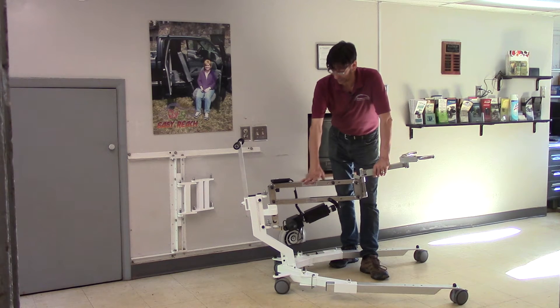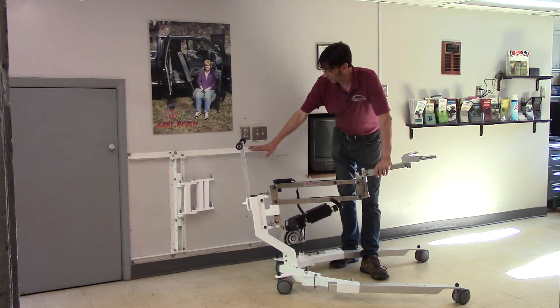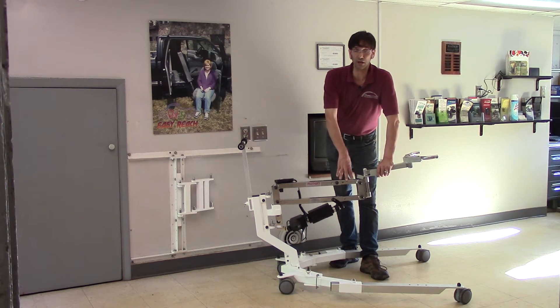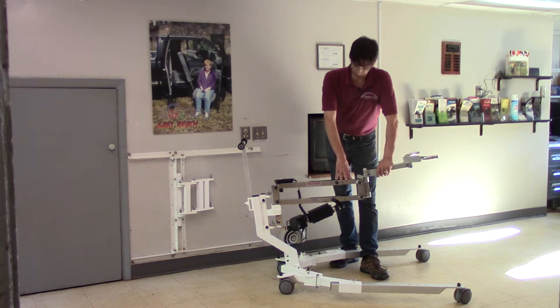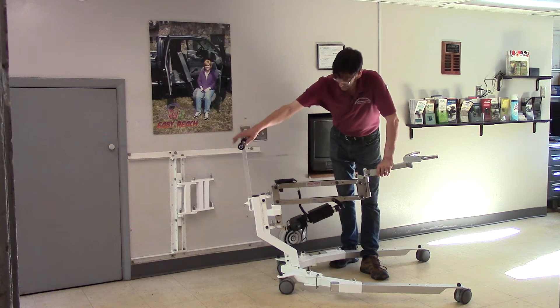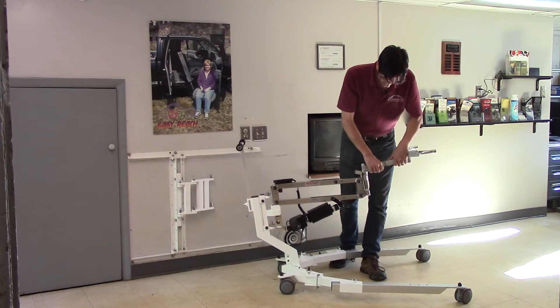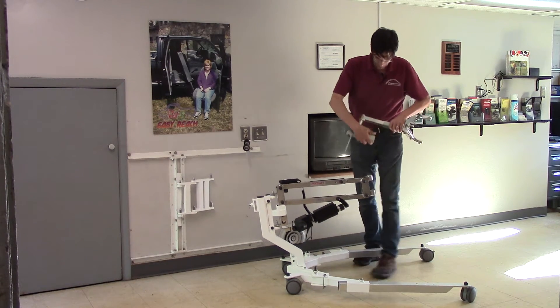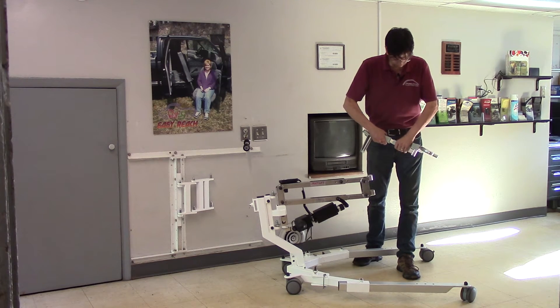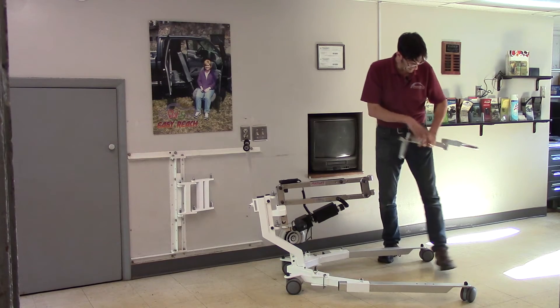Here you have the basic multi-lift that works in a wide variety of circumstances: in your home on the wall, in a vehicle, to lift a wheelchair, and a whole different variety of things. One of the most important parts is that it can be used in conjunction with the EasyBase, which is an accessory. Here we have a multi-lift with the motion limiters required for the EasyBase — one that limits the motion of the swing arm and one that limits the motion of the spreader bar.